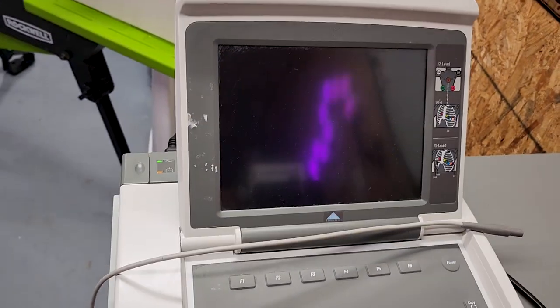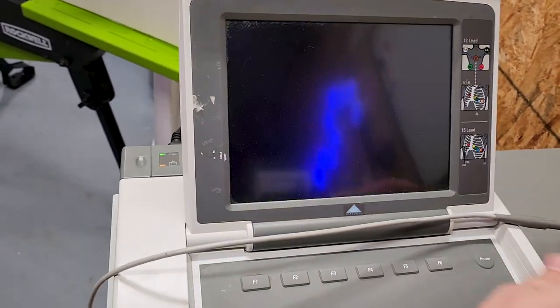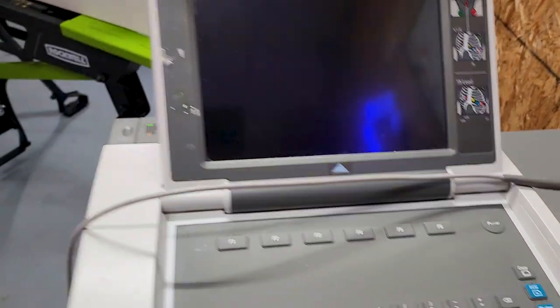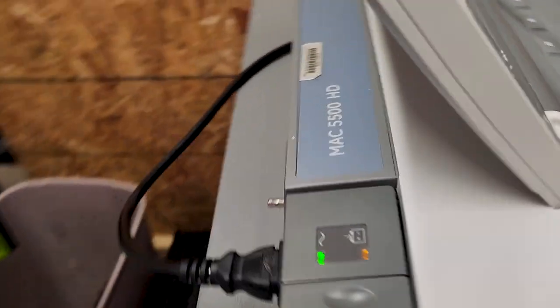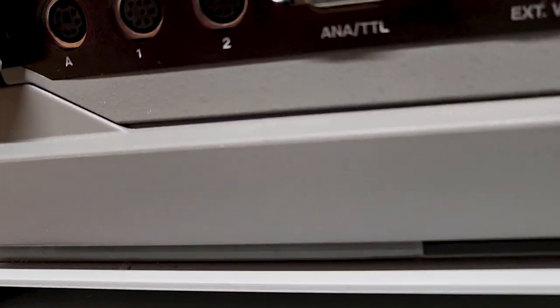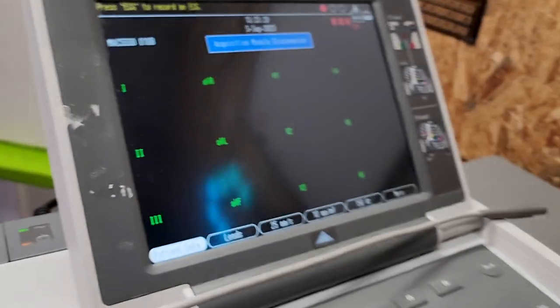So we're going to go ahead and do that right now. This is my GE MAC that was just brought over — it's got some issues they say. Let's go ahead and power it up. It currently does not have the external modem, but I do have ports. The ports physically look okay, so if the ports aren't physically damaged there's already a pretty good chance that it's probably fine.